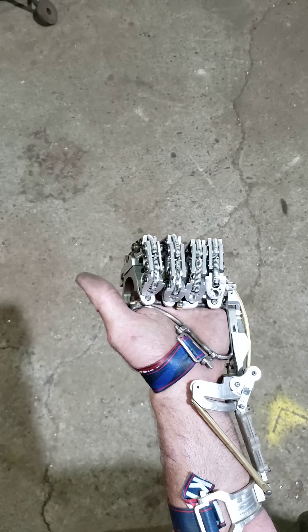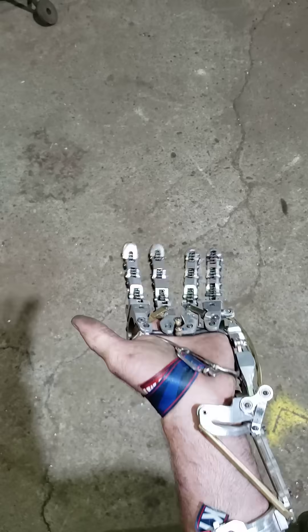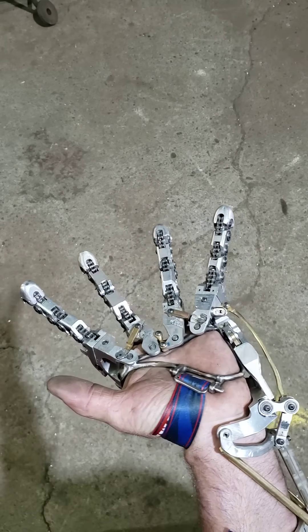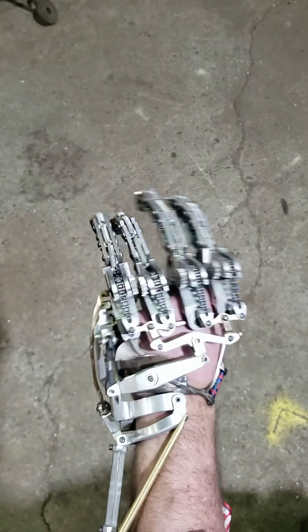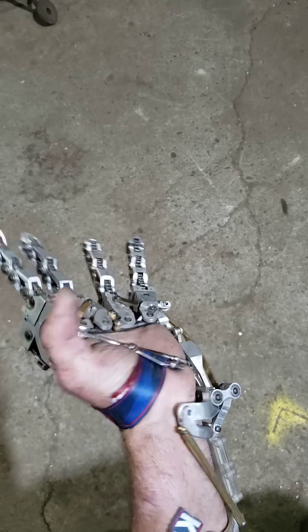Here's another update on my hand project. It's been a couple weeks — last week I was able to move my hand open and close, and now I'm able to splay the fingers. That's all done off of the gimbal, off of the wrist — just lateral motion, and then forward and reverse motion is how you open and close it.